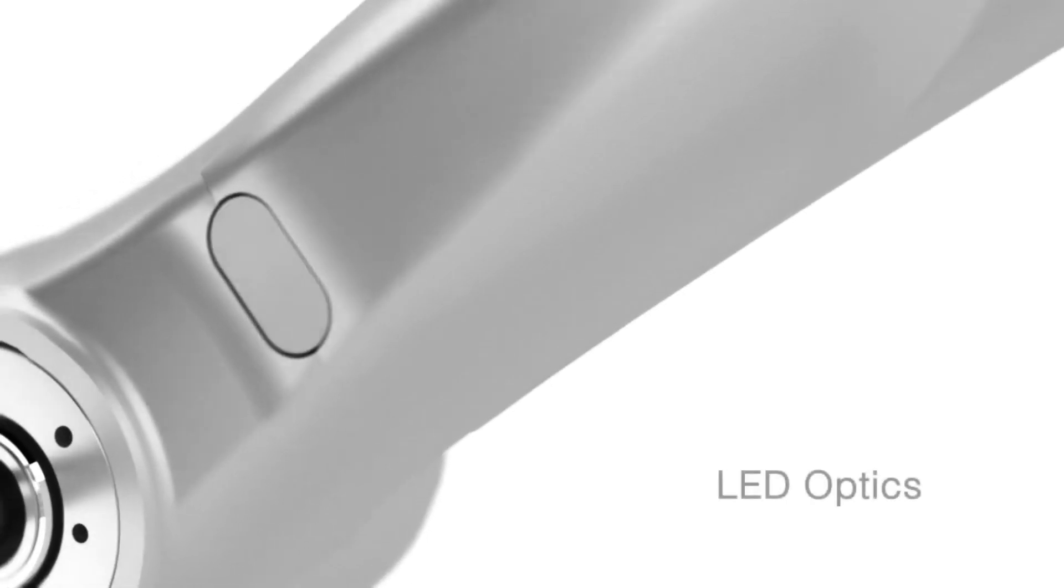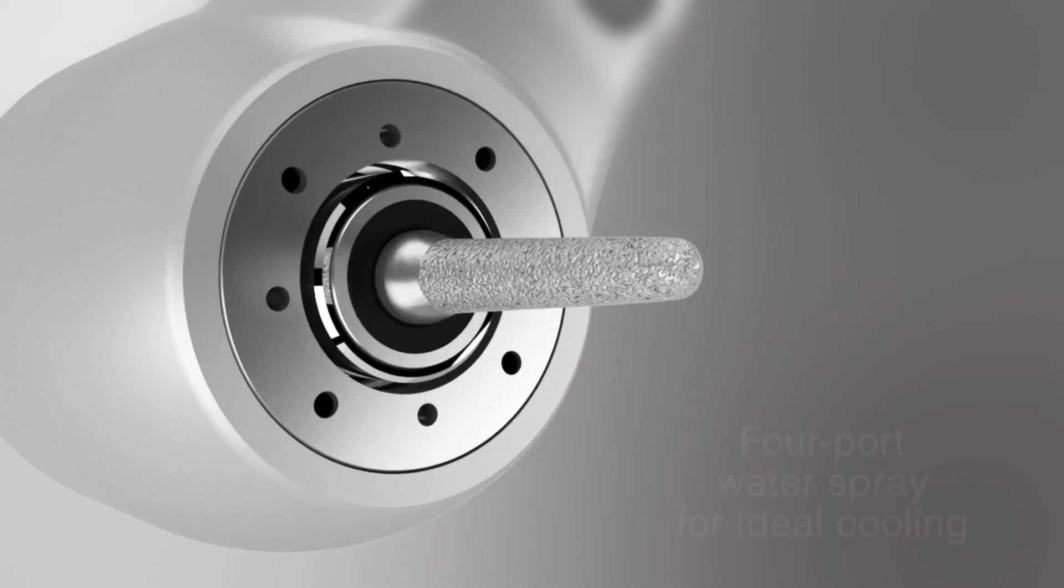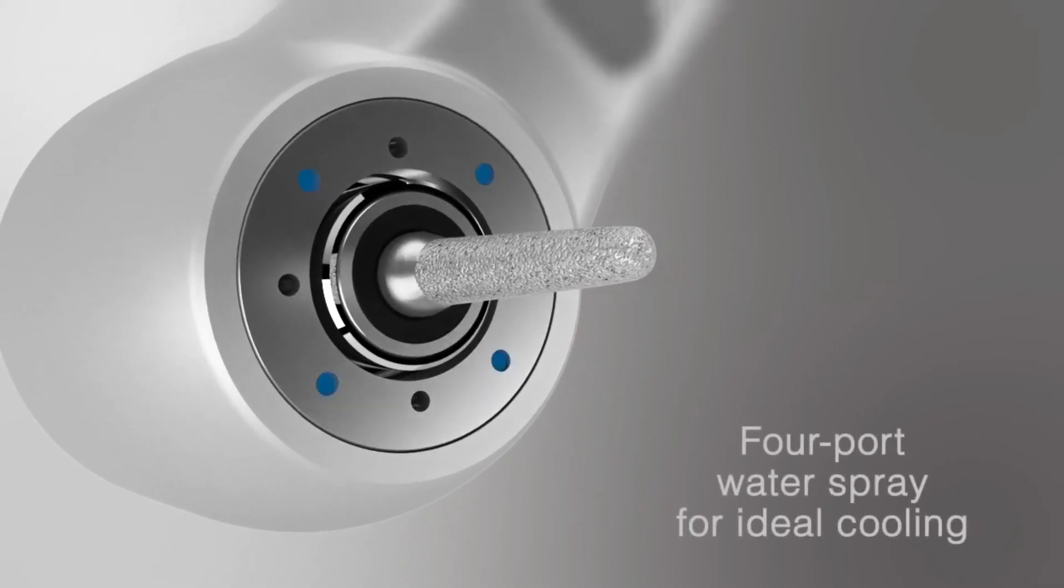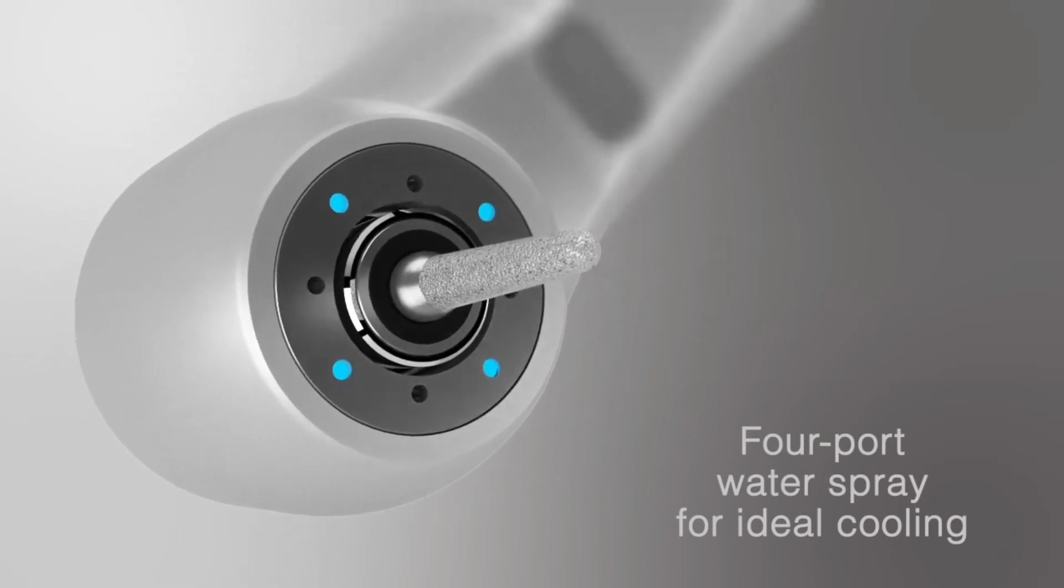As for the in-hand feeling of the drill, it's pretty evenly weighted throughout the body. Some dentists really prefer the feeling of evenly distributed weight in their hands, considering how much power this handpiece packs. It is often used in dental practices all over.